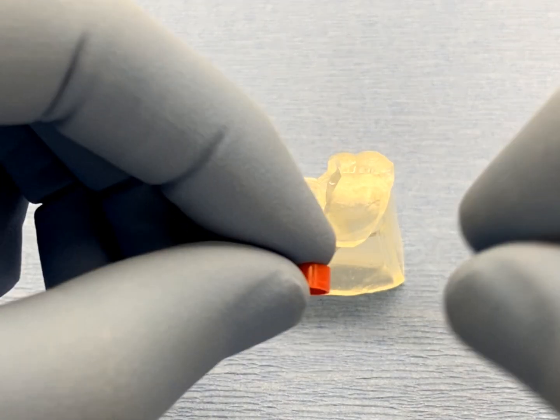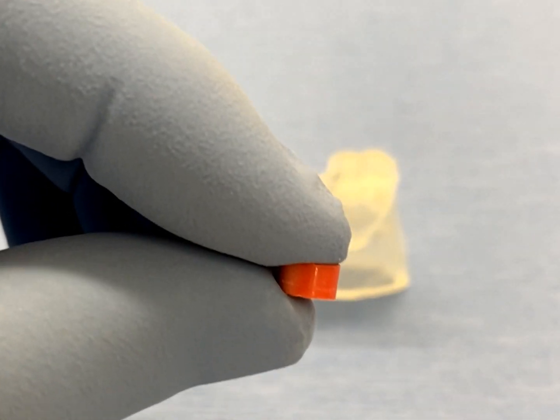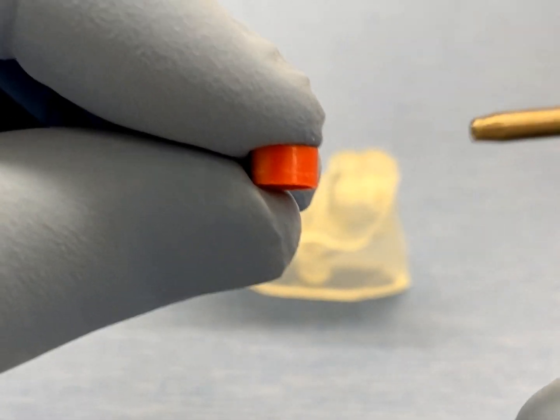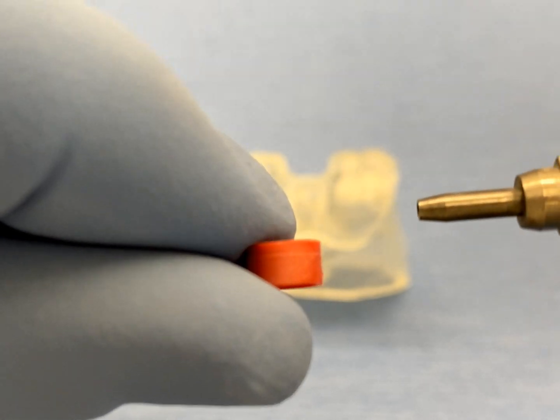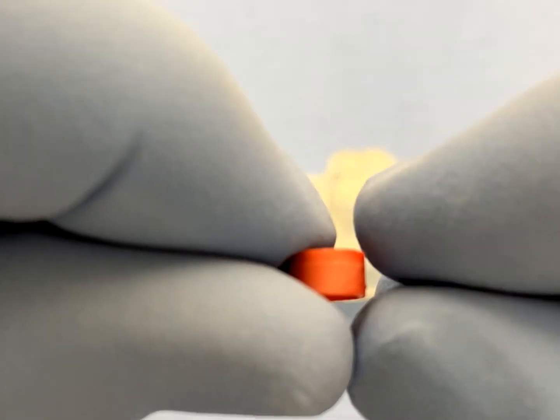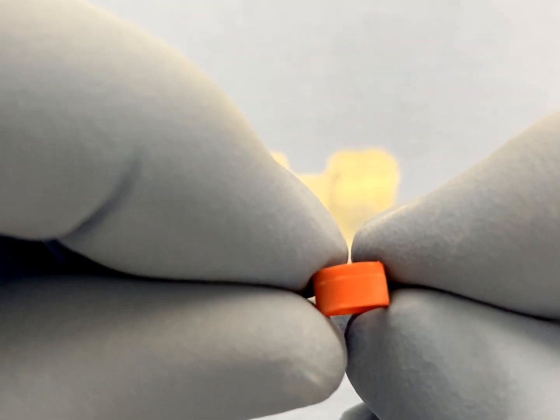Next, lightly air-abrade the external surface of the GRS ring. This process will microscopically texture the surface of the ring while also increasing the overall surface area, ensuring maximum retention and bonding of the ring to the surgical guide.